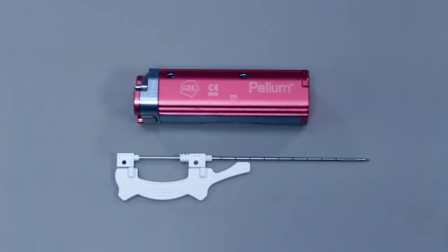Palium gun is MDL's automatic reusable gun for soft tissue biopsy. Palium needles are the disposable soft tissue biopsy devices that are compatible with the Palium gun.